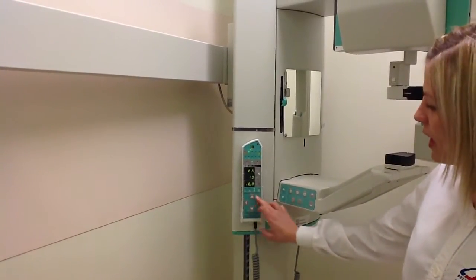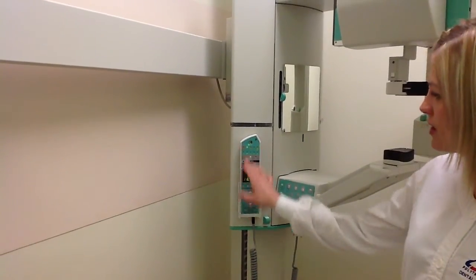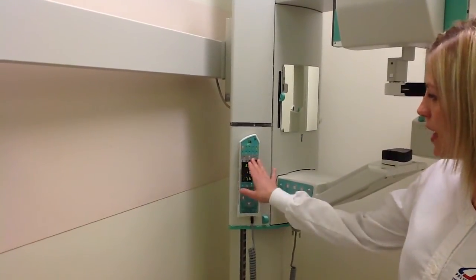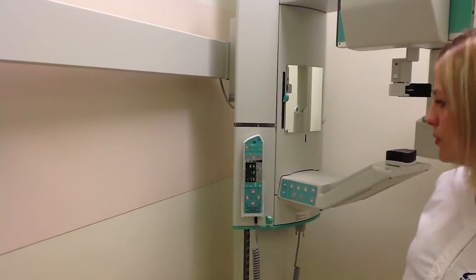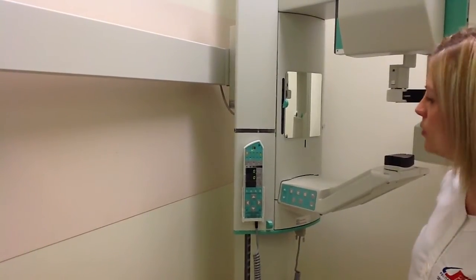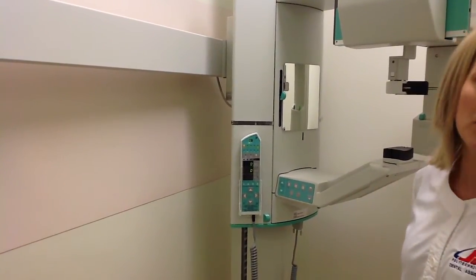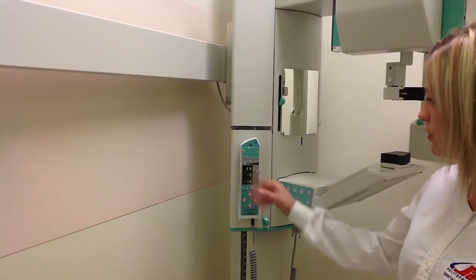We use these 4 arrows on the lower end of the panel to control our settings. So we're going to be using an adult size, and I just arrow down, select automatic, manual, or test. For our patient requirements, we use the manual. And if ever we're testing or practicing on a peer, we will be using the test mode. This test mode will activate the machine but will not use any radiation. So for today's purposes, we'll start on the manual.